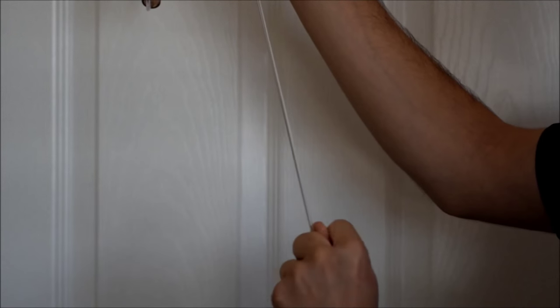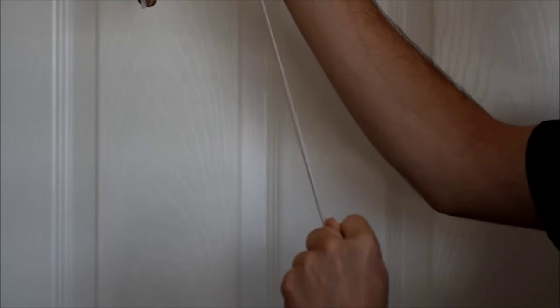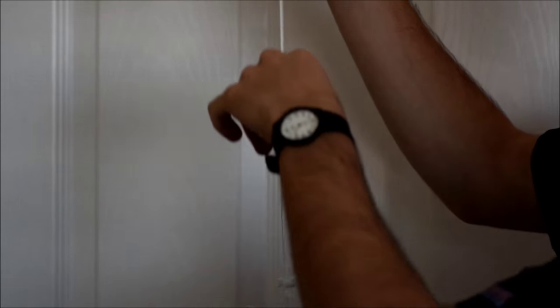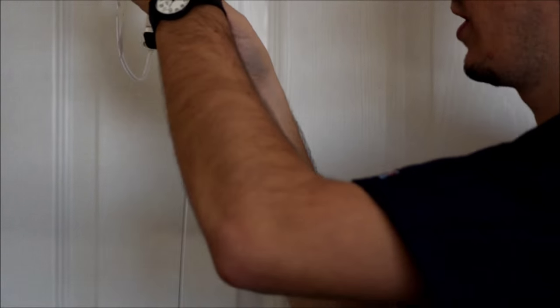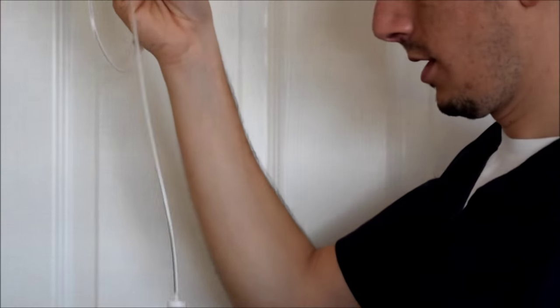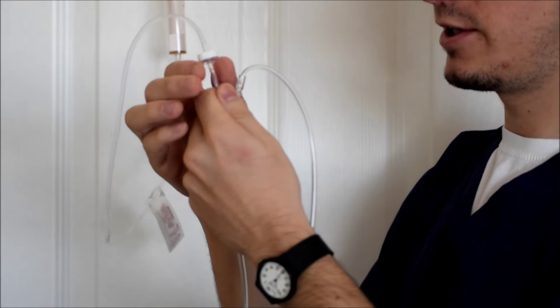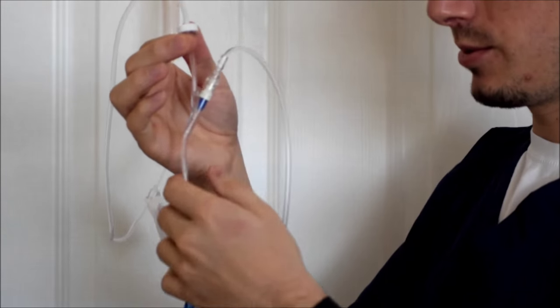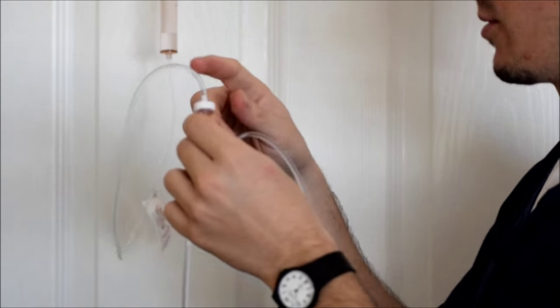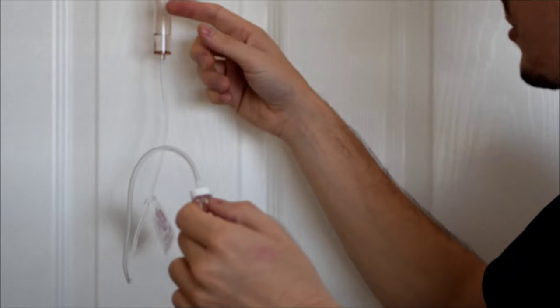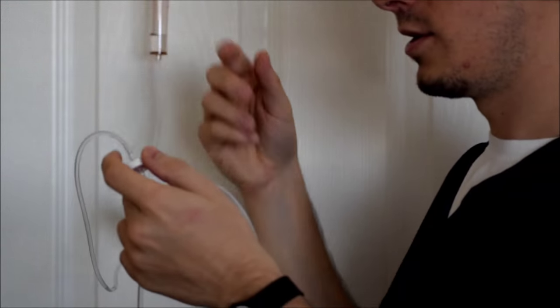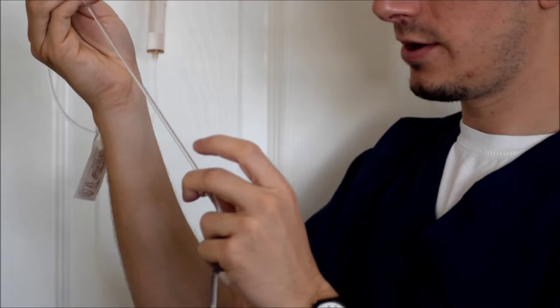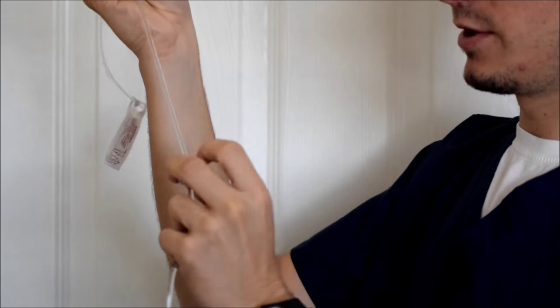Just keep flinging and flinging, and then they're gonna shoot right back up. Sometimes they have a little filter here that catches the air bubbles in, so that's good enough. You don't have to bring it all the way back up to tubing. As long as you get a majority of it out, you're good enough.